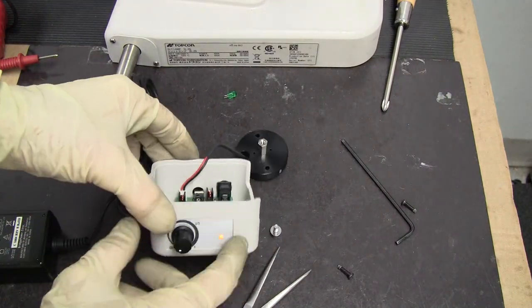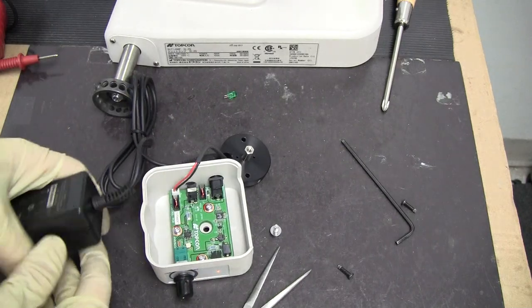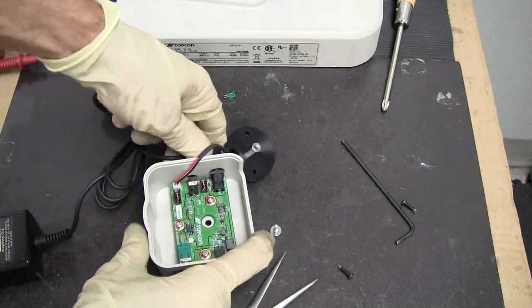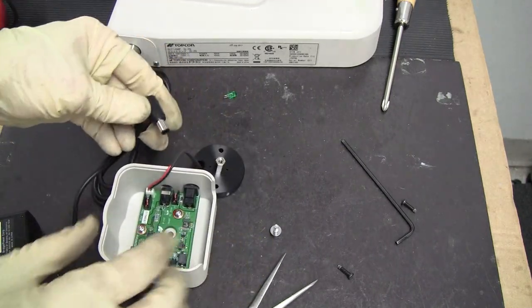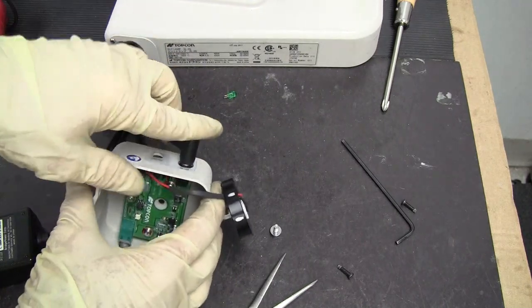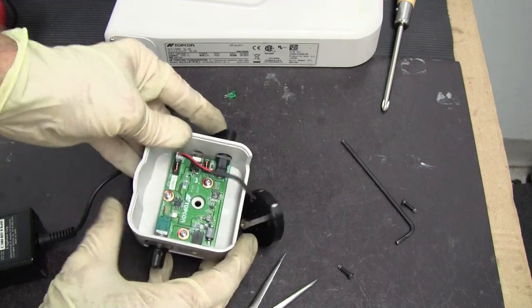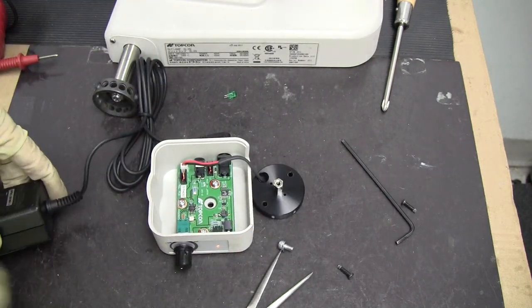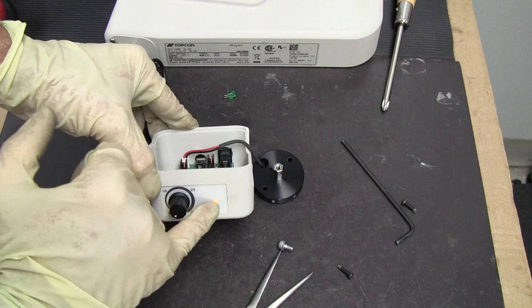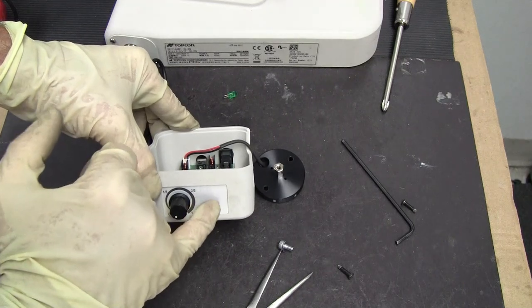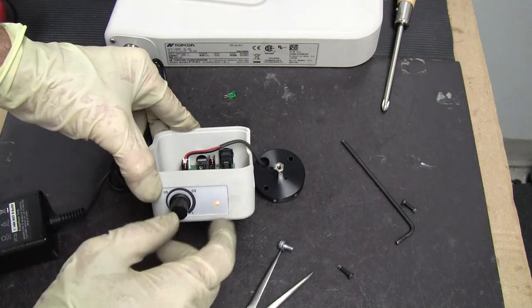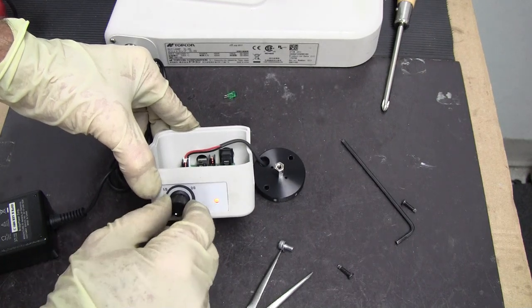If it's not coming on at all, check your voltage of your power supply. Make sure it's plugged in all the way. You should hear a click. If you have power going to it, this external LED indicator should light up.